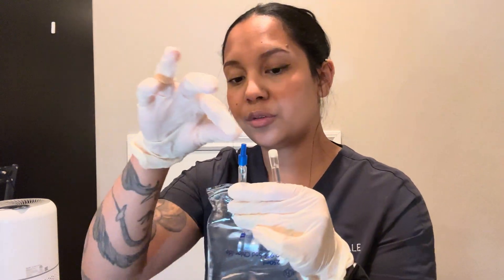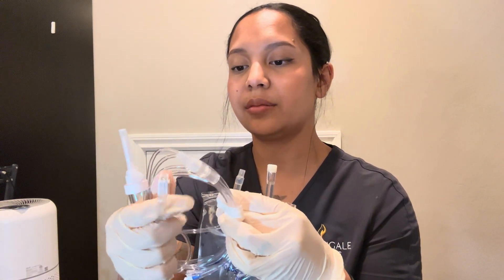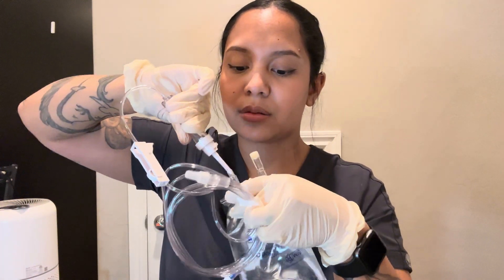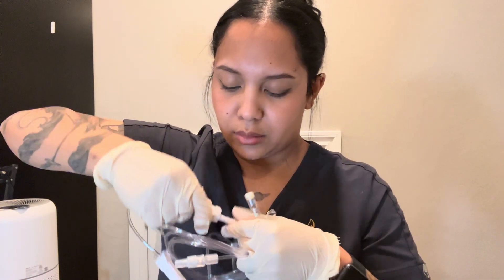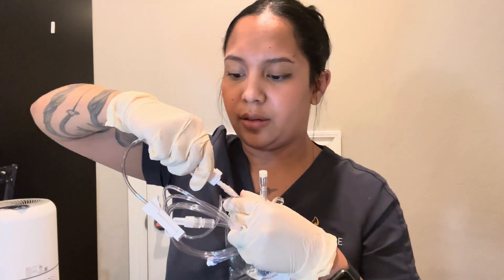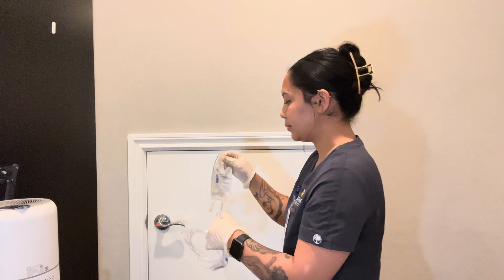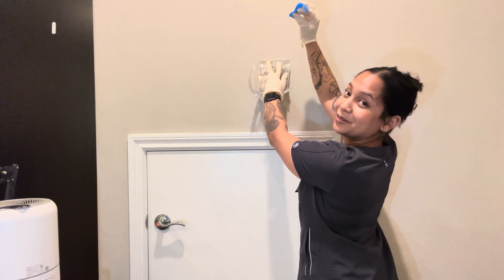The secondary tubing is essentially the same, except there is no white port included. So I'm going to go ahead and spike my bag. I'm going to remove the blue cap, making sure that this is clamped so that the fluids don't run out. Remove the cap, and then go ahead and insert it. I'm going to hang my bag, making sure that it is 30 inches above the patient's IV site.